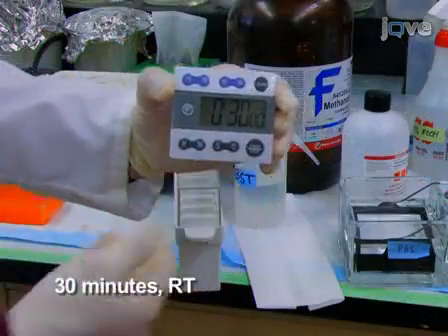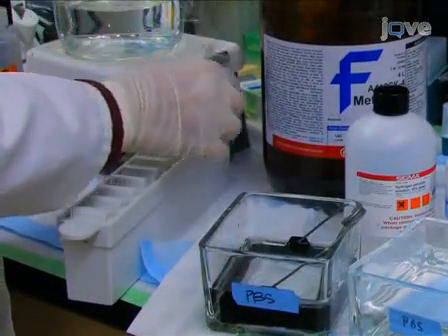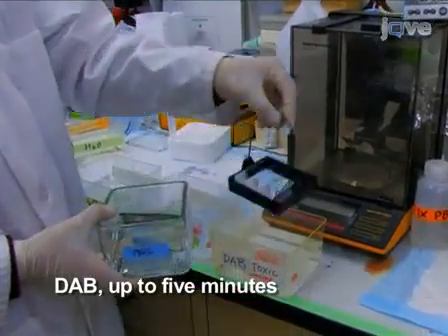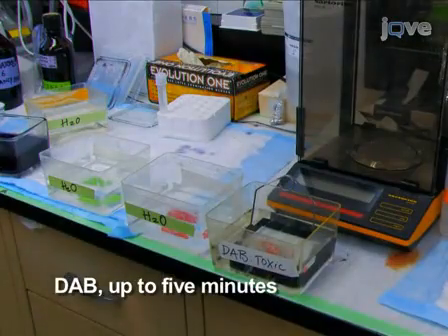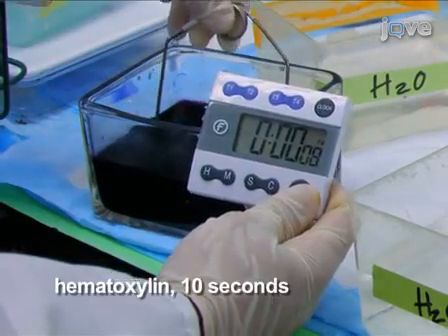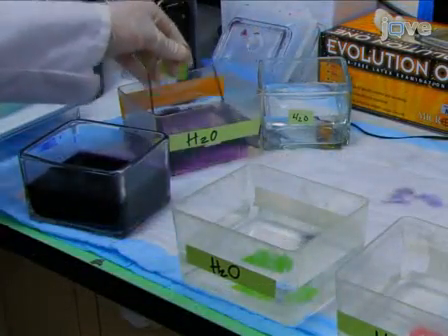After the incubation, wash once with TBST and transfer the slides from the sequenza into a slide rack in PBS. The slides are later immersed in DAB substrate for up to 5 minutes, with watching to ensure that the brown staining does not get too dark. This is followed by counterstaining with a dilute solution of hematoxylin for 10 seconds. Rinse slides thoroughly in tap water, followed by deionized water.